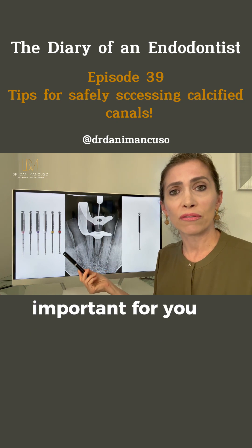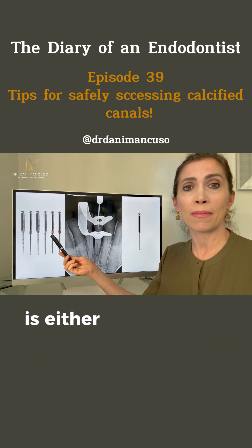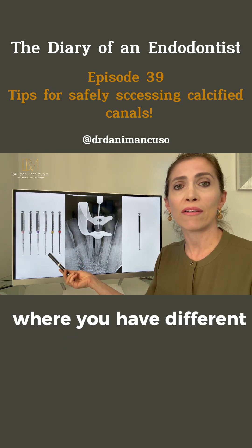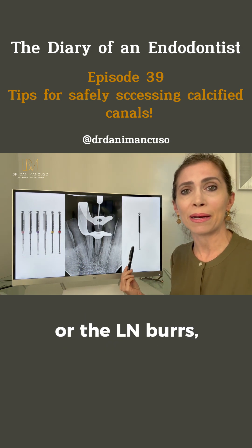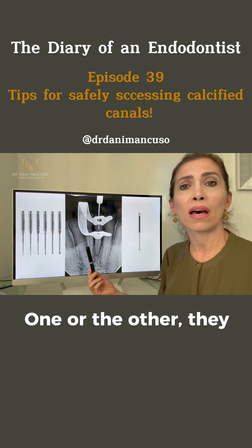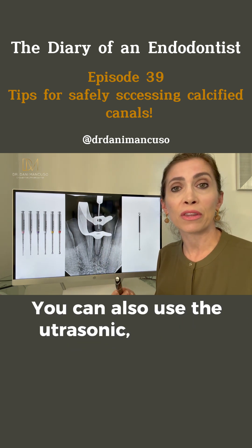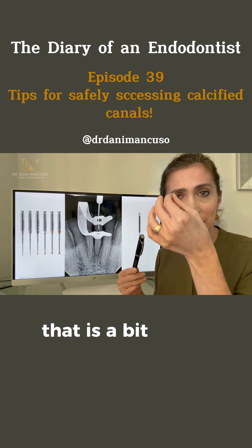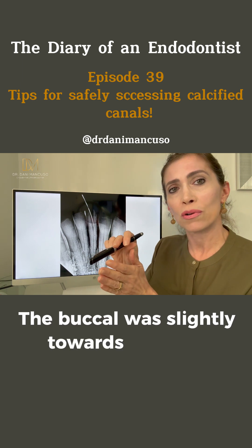Another important thing to have in your armamentarium is either the Munce kit, which comes in different sizes, or the LN bur, which also comes in different sizes. One or the other — they are amazing. You can also use the ultrasonic size 4, which is a bit longer.